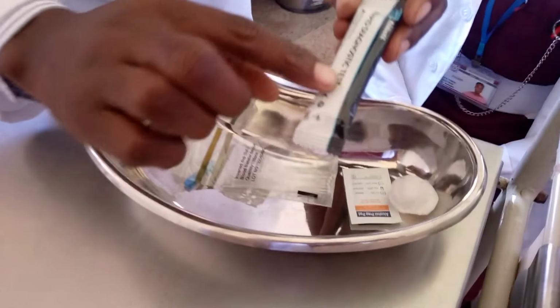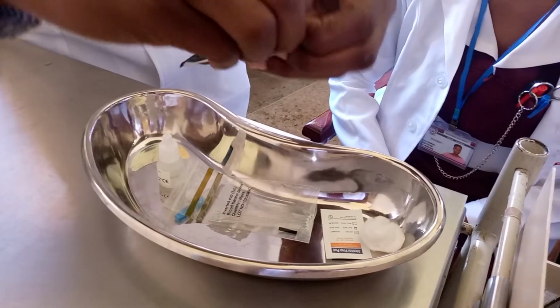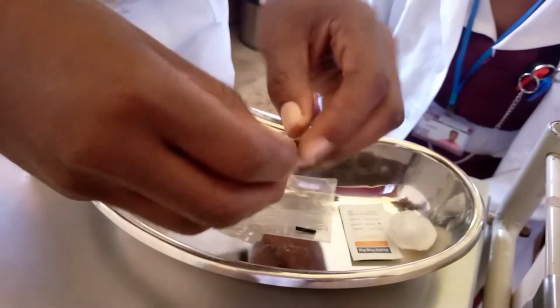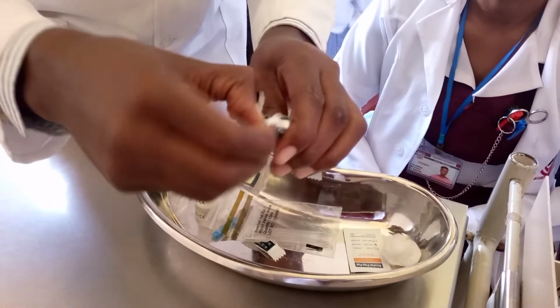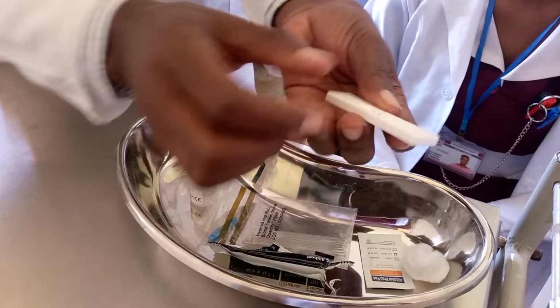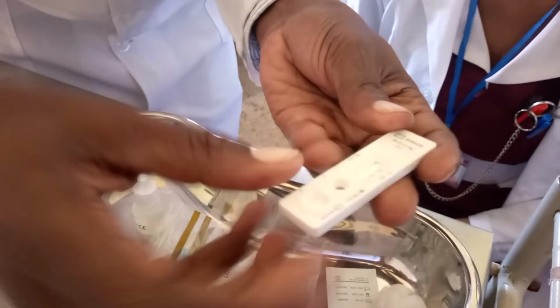Here, what you have is the rapid diagnostic test kit. This is how it looks. You're going to open using the zigzag, follow it, and then do that. This side as well, you can try to open it. Or if you have scissors, you can quickly use the scissors so that it comes out as fast as possible. When you see the test, it has maybe only one port on this side, and you can see there are two here.